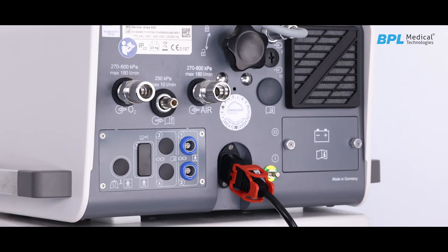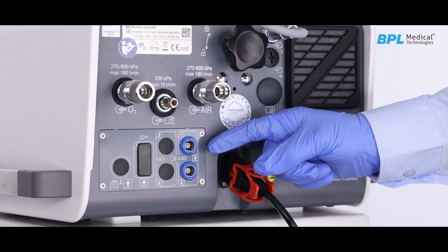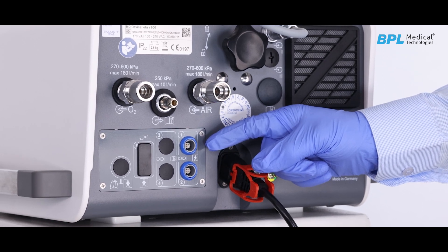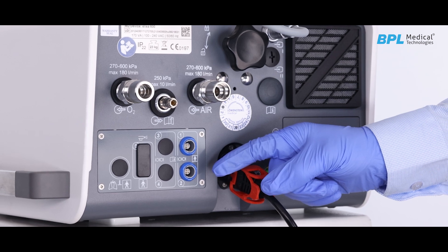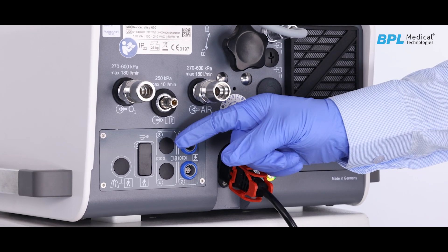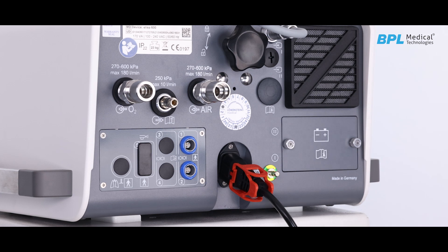These ports are used for volumetric ETCO2 sensor module connection, interface to PDMS — that is the patient data monitoring system — upgradation to mesh nebulizer interface, software patches and calibration.